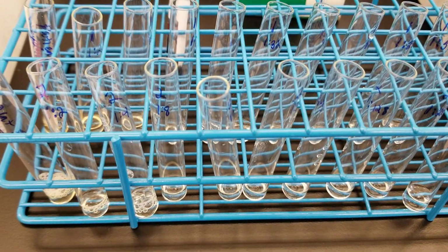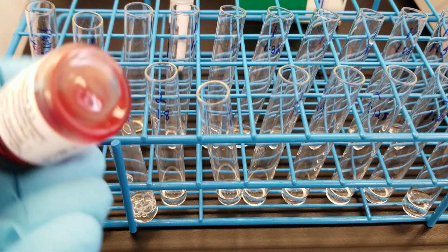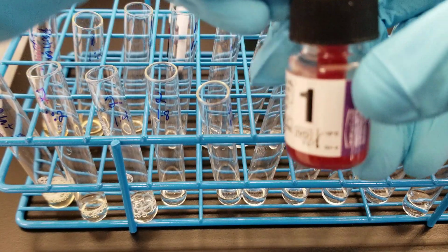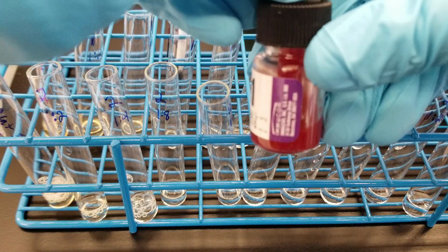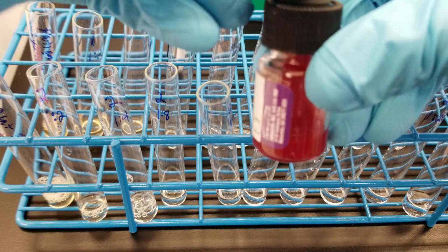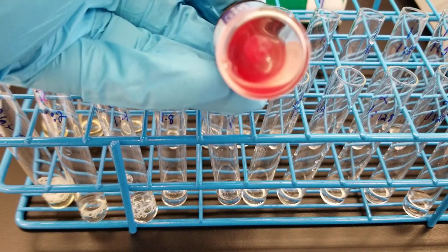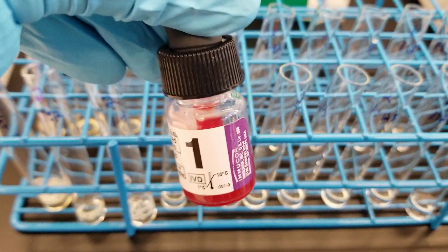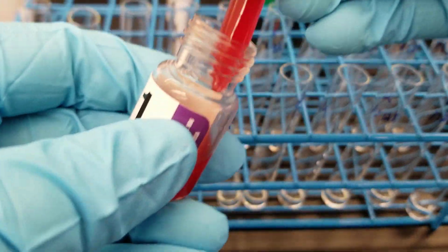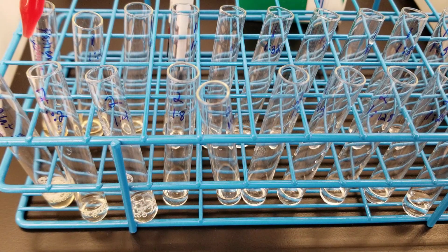Okay, so now what we're going to do is, this is where that reagent cell that we chose earlier comes in. Remember, it's homozygous. That's very important. So if you ever have an antibody that you're trying to work up in a prenatal workup, you need to make sure that it is going to be homozygous if that is an antibody that shows dosage. Okay, so the antigen representation is going to be homozygous on the reagent cell. Okay, so we're going to add a drop to each of the tubes.